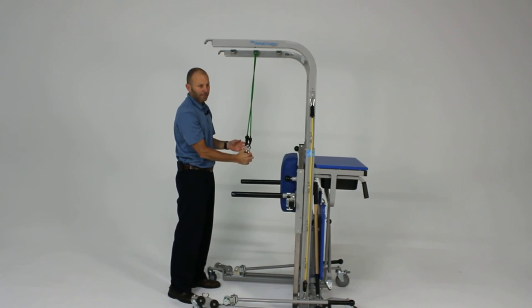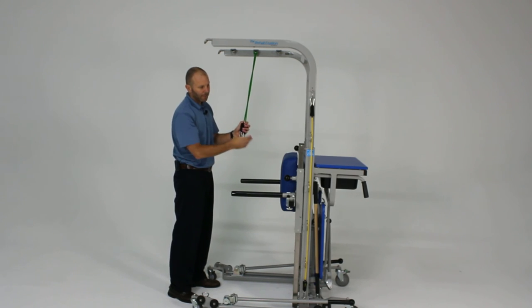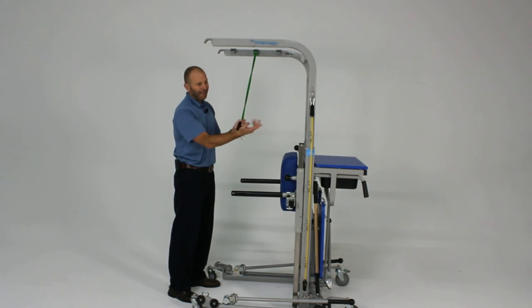This doubles the amount of resistance, which you can also do from the sides. Or you can add cords together to get the amount of resistance you need.